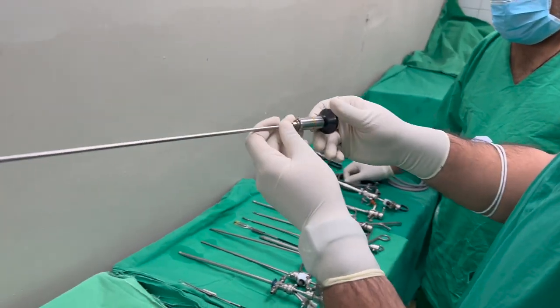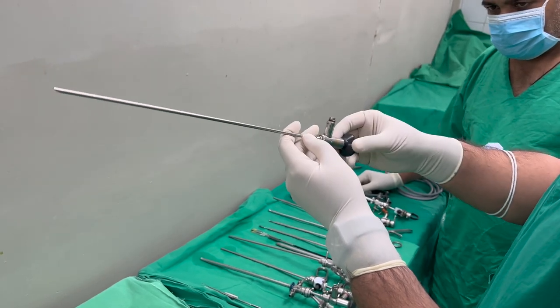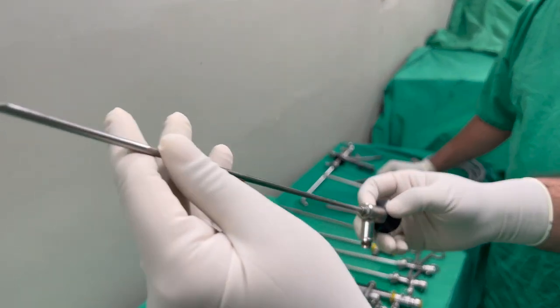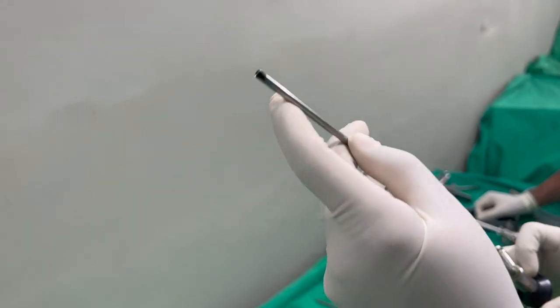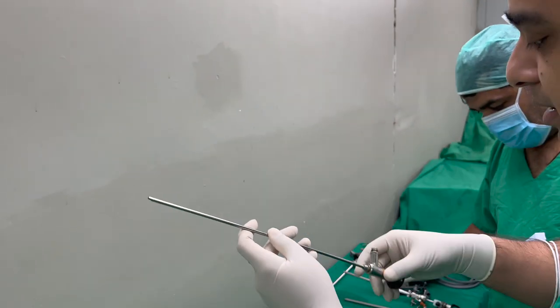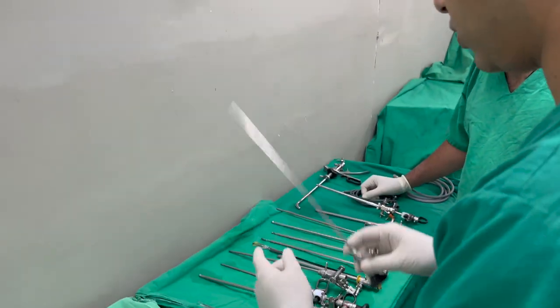This thing is frequently asked in exams and we will use it as well. This is a telescope. The color of the telescope tells us which lens it has. It is 30 down — you can appreciate that it is looking down like this, at the downside. So this is a telescope.